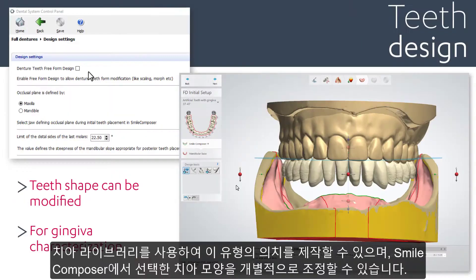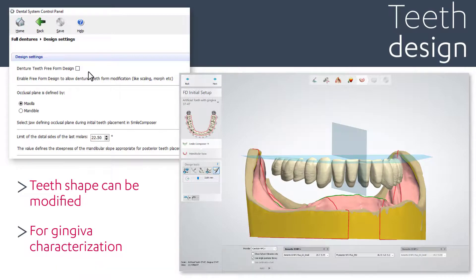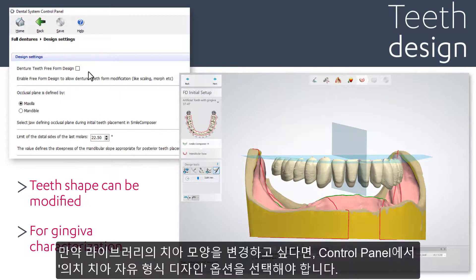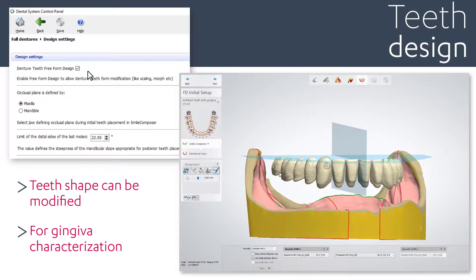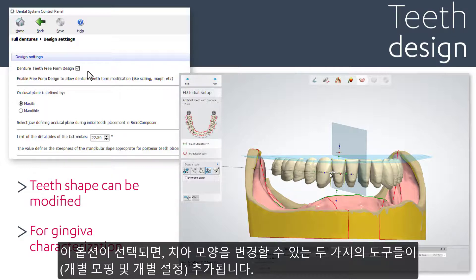For this type of denture, you use the chosen teeth library and adjust their shape individually, also in the Smile Composer. To be able to change the shape of the teeth, check the option Denture Teeth Free Form Design in the control panel. That way, you'll get two additional tools — Individual Morph and Individual Setup — to change the shape for each tooth.